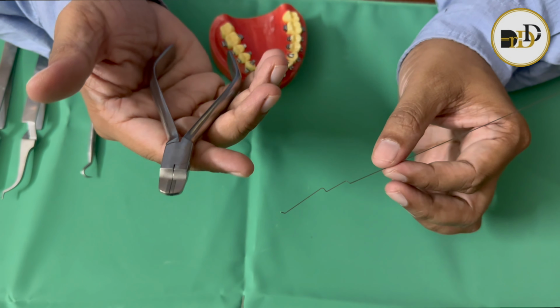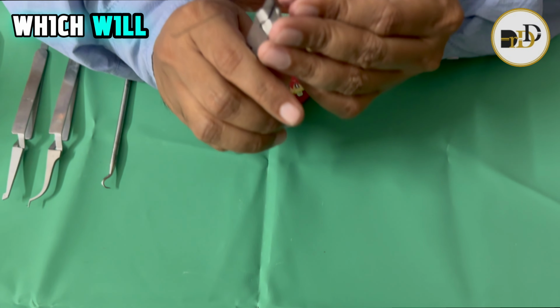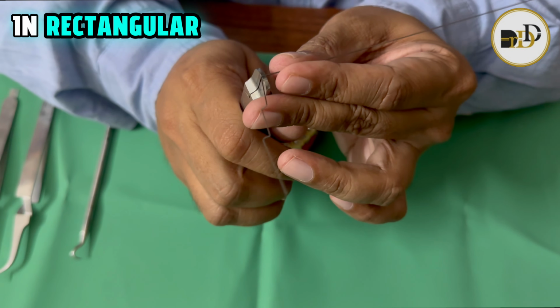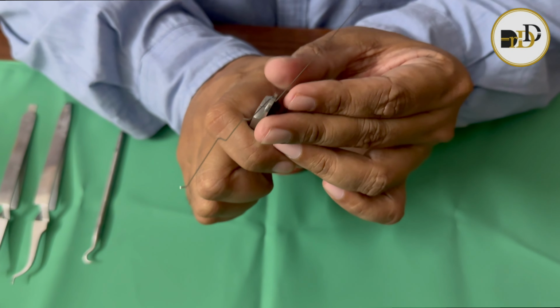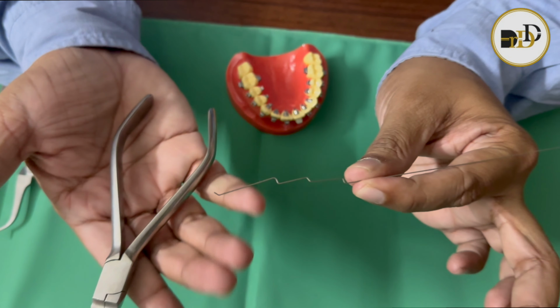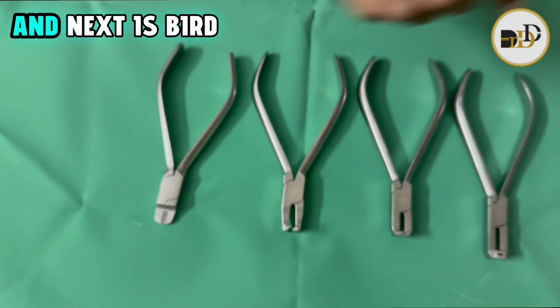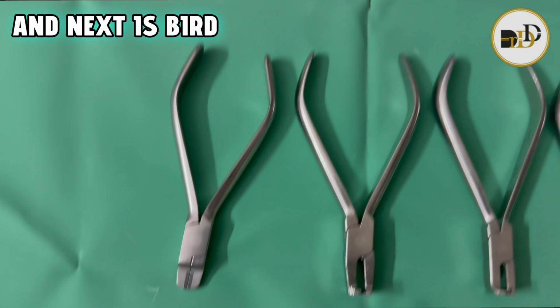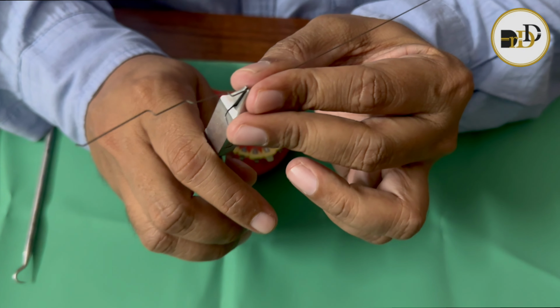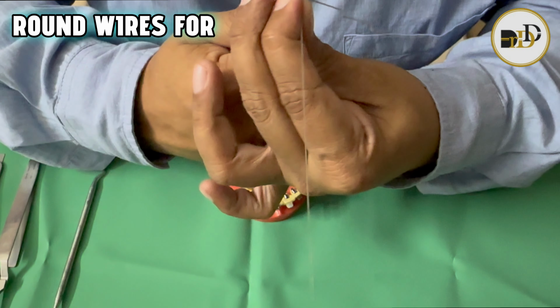The next required instrument is the ribbon arch plier, which is useful for making bends in rectangular wires. And next is the bird beak plier for making bends in round wires.